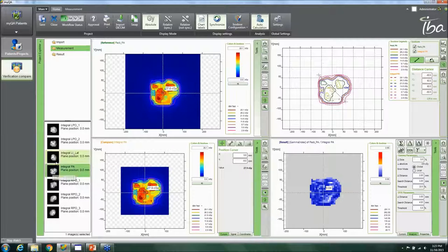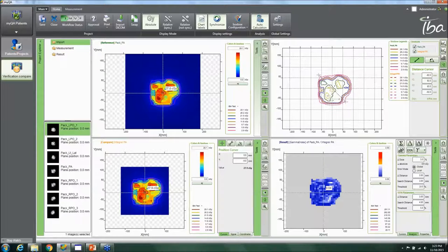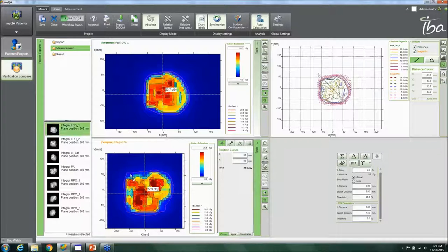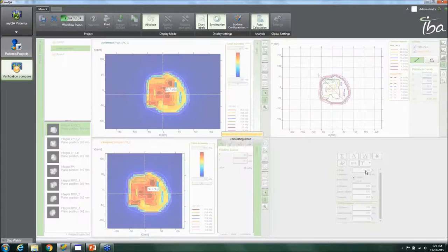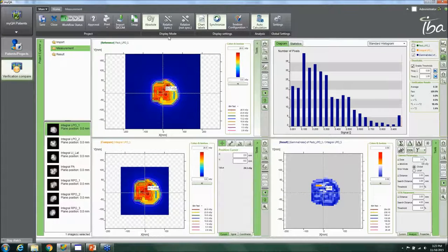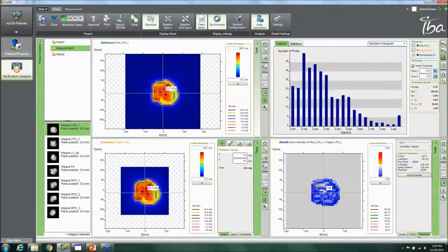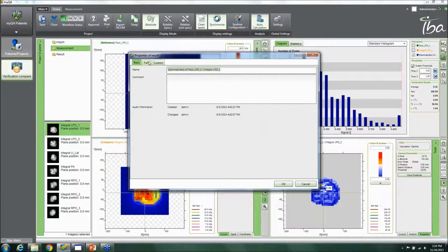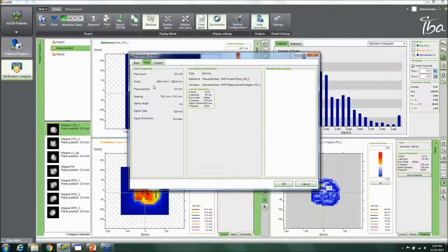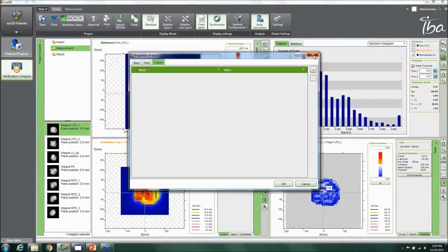For each individual field, switching to the next one is simple — you pick the next plane, drag it in, and do another quick gamma calculation that gives results immediately. Additional calculation options include absolute difference, difference, sum, quotient, DTA, and gamma, with both global and local gamma comparison modes available. A properties tab shows the individual measurement properties including detector spacing, origin, and pixel count.